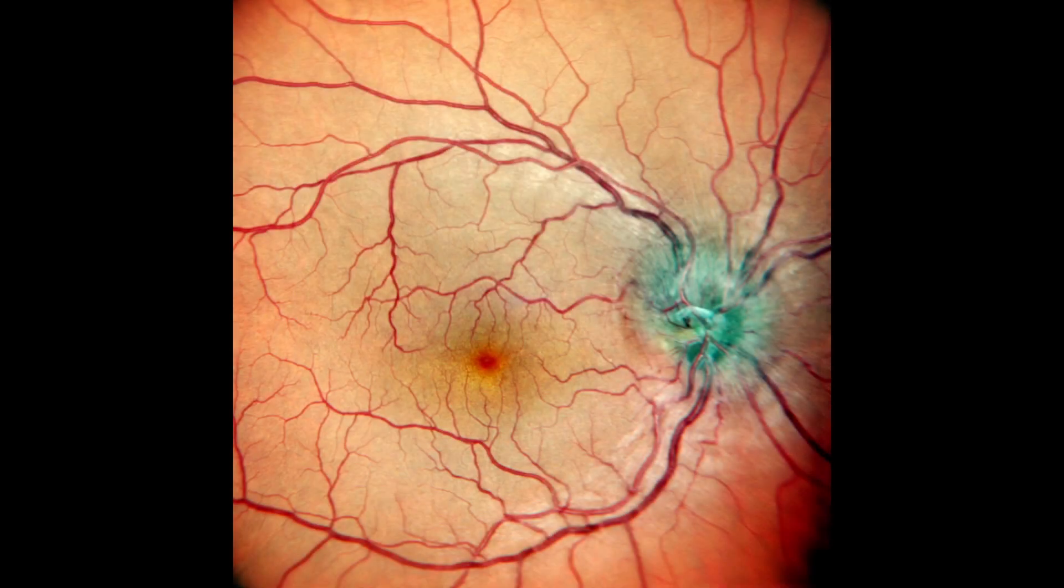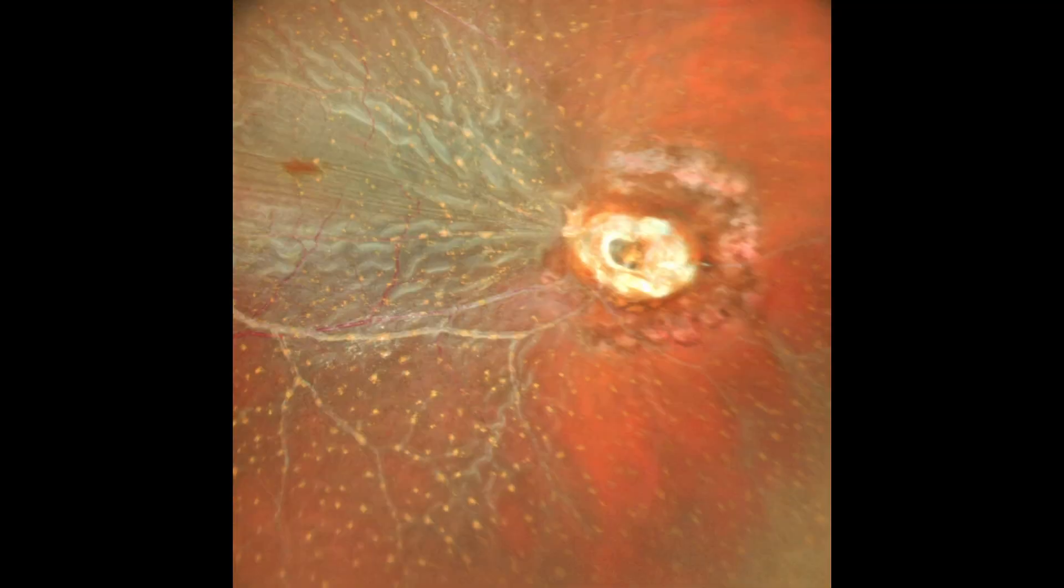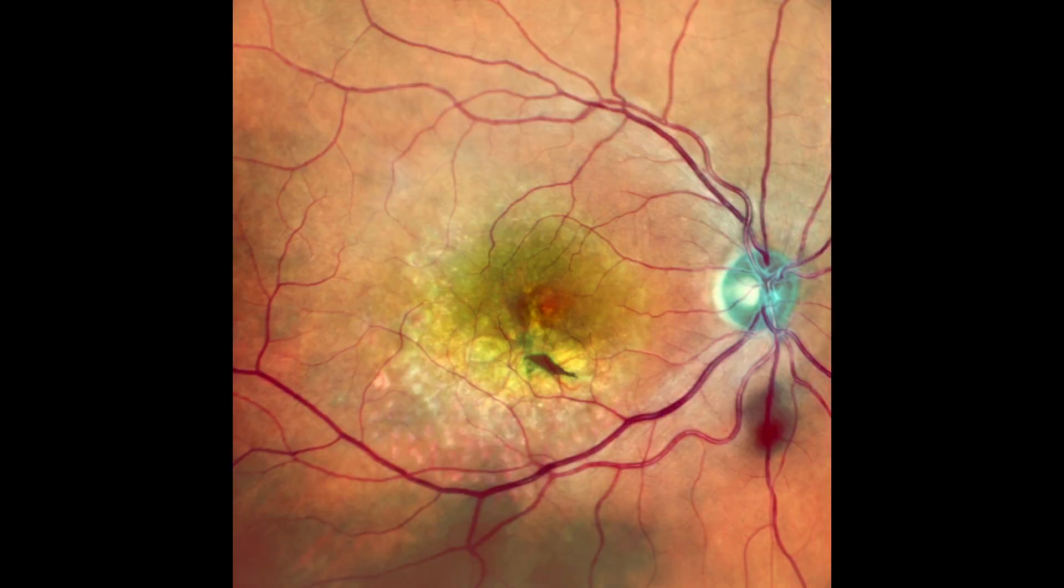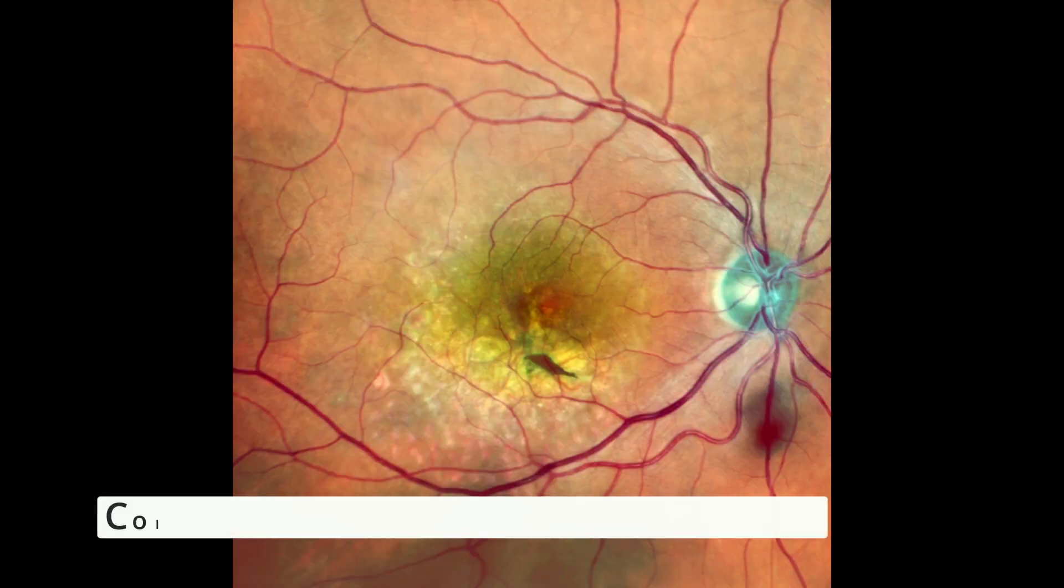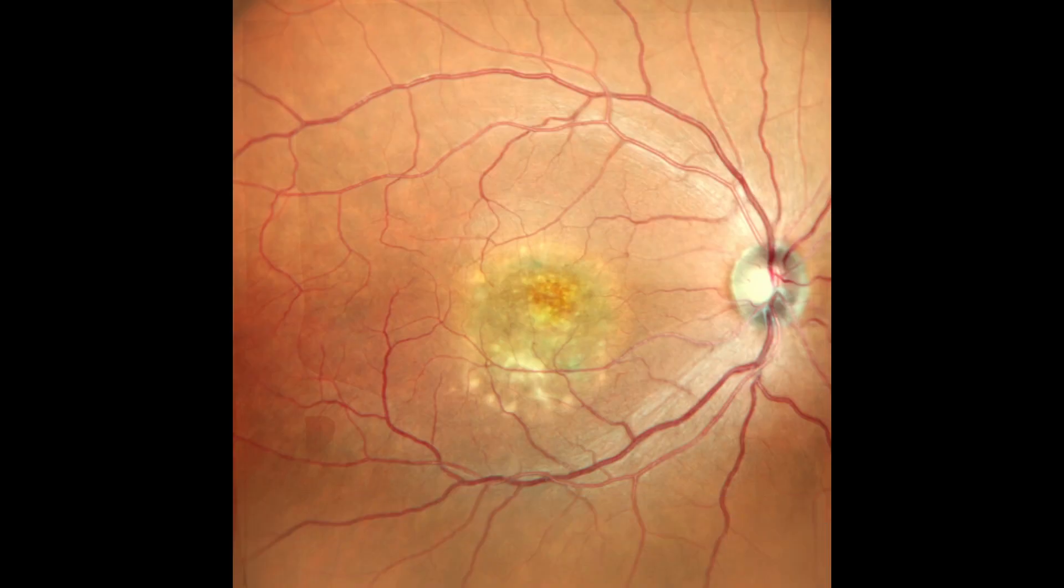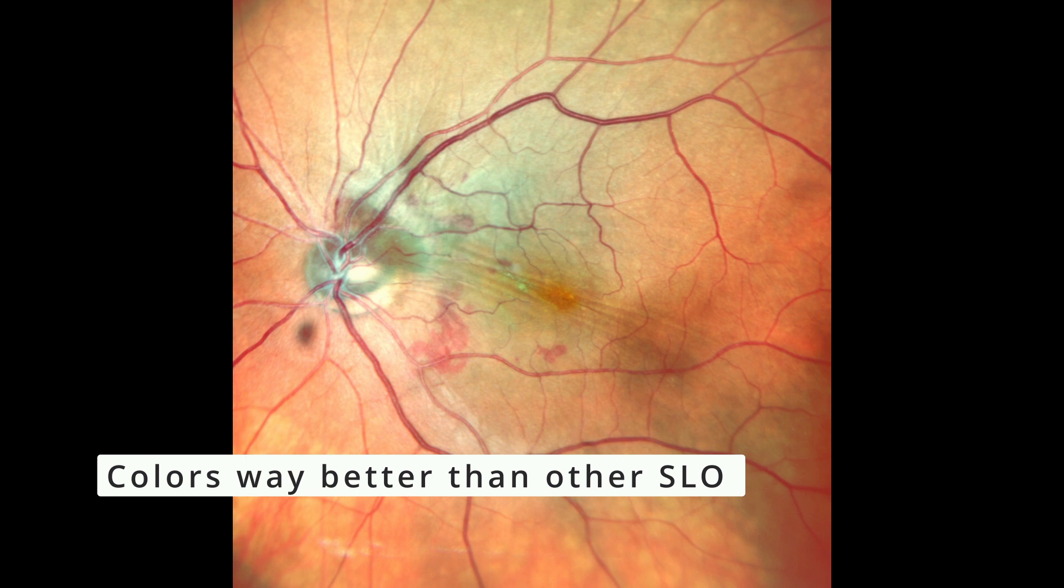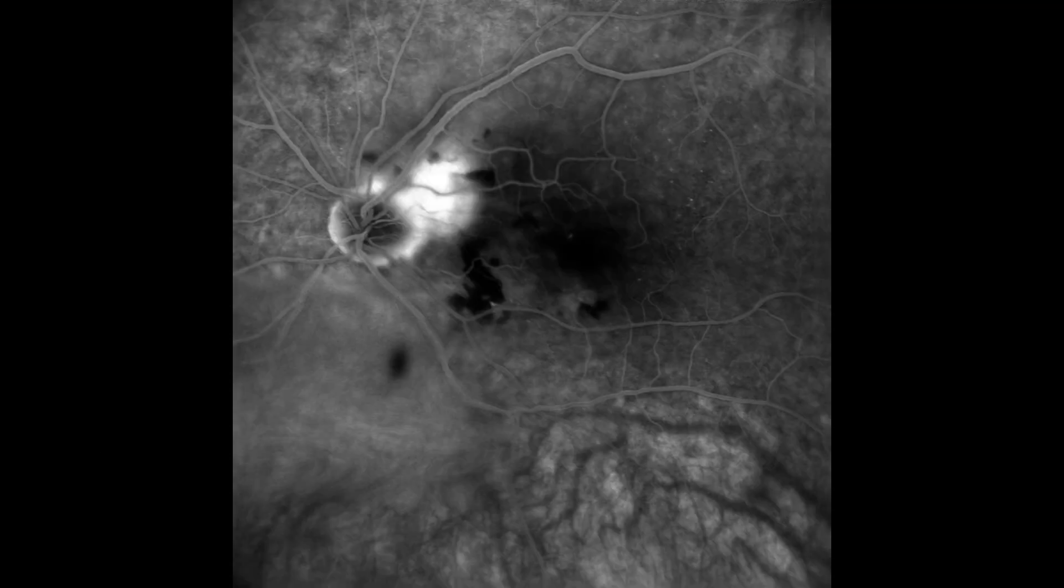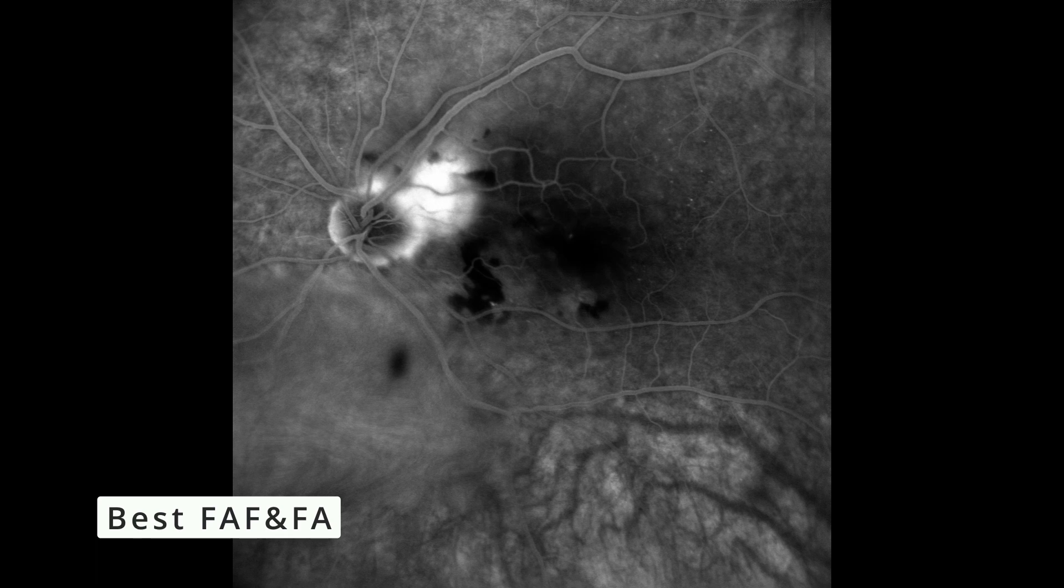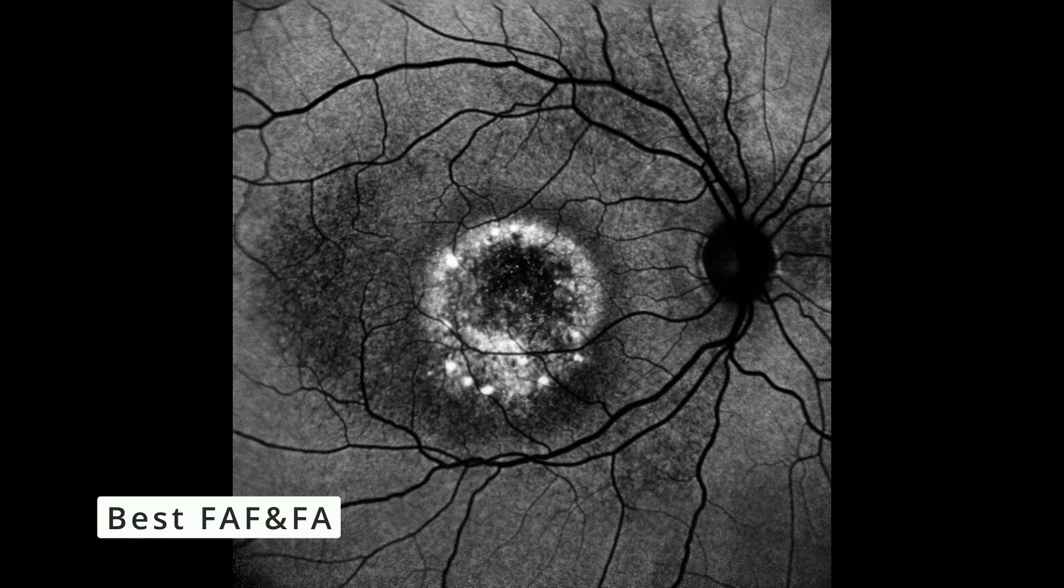Let's review Mirante. This is an SLO system that means that you get a pseudo color, so the images, the colors are going to be distorted. It's not as nice as Clarus or Eidon because they use true color. This is still way better than many older models of Spectralis where the colors were like green and blue. However, because the machine uses laser, what's bad for the color fundus is actually amazing for the monochromatic images like the FA or FAF or ICG.